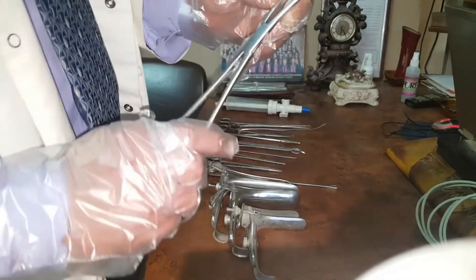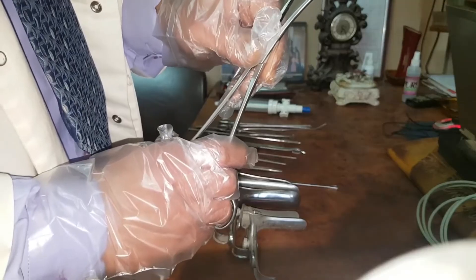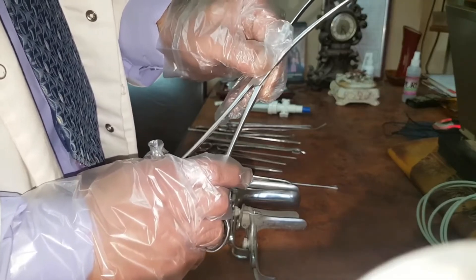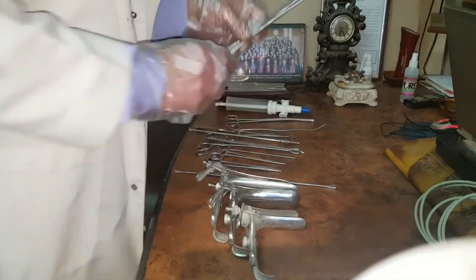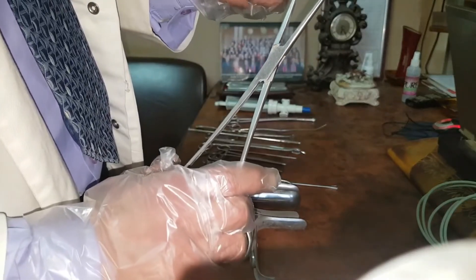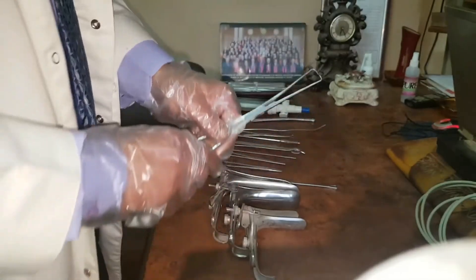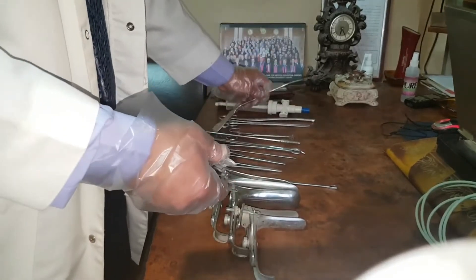This is a multi-toothed tenaculum or vulsellum, used to hold the anterior lip of the cervix in many surgical gynecological procedures. Also, this is the single-toothed tenaculum or vulsellum. There is a single tooth used to hold the anterior lip of the cervix before IUD insertion, before hysteroscopy, or uterine sounding.